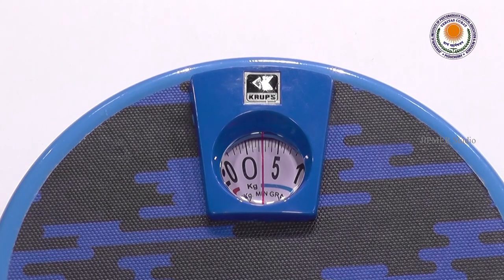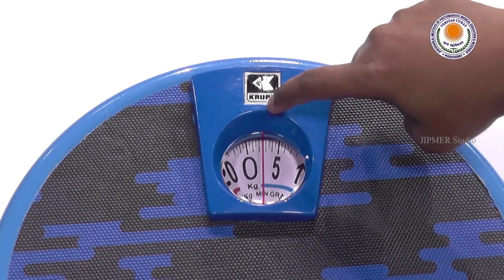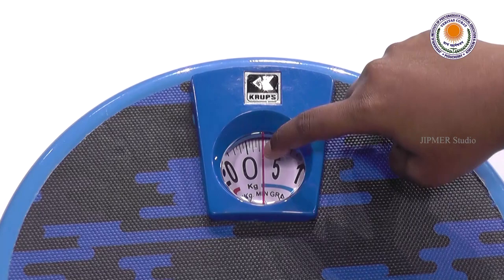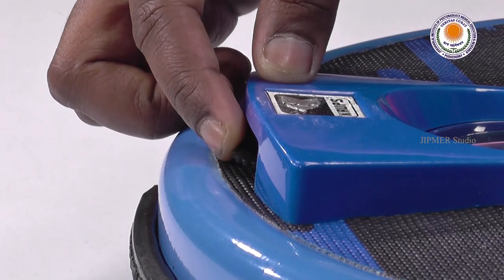Based on the performance of your heart, you should check your weight daily at the same time, since weight can be affected by food intake, weather, etc. Use the same scale every day and avoid wearing thick or heavy clothing or shoes. Make sure that your weighing scale is calibrated before use — that means the zero mark should be placed in the middle or just below the red line, and you can adjust it from the side.